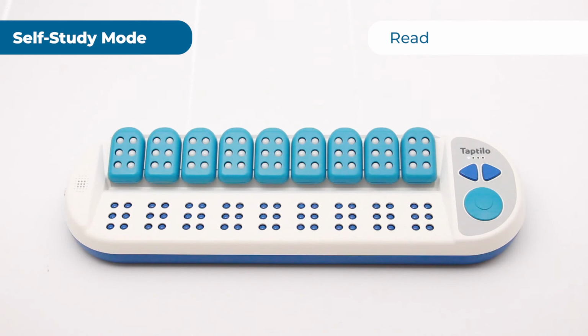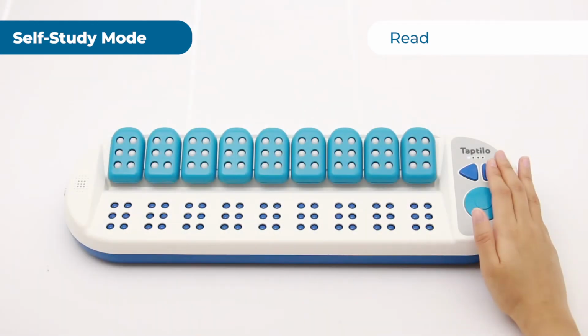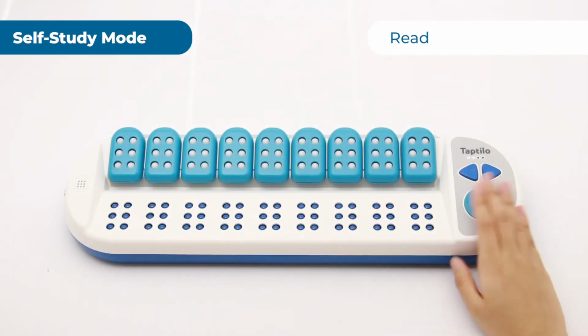In the next few episodes, we will look at each program in self-study mode. In this episode, let's go over the first activity, read. In read, you can choose among 4 topics: number, alphabet, short words, and long words. For this example, let's choose short words.